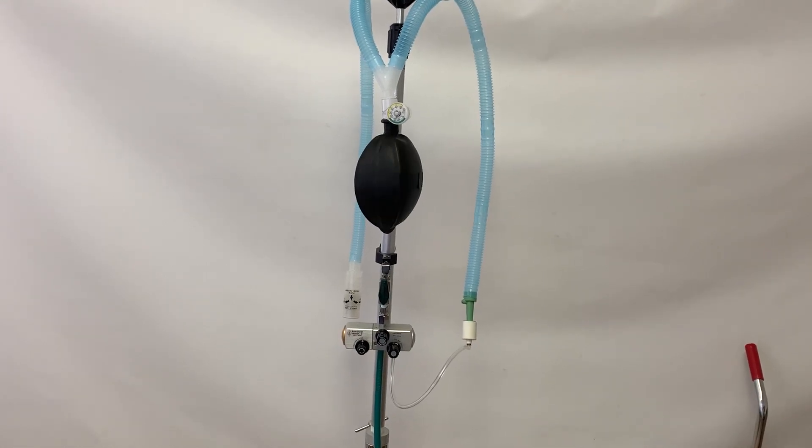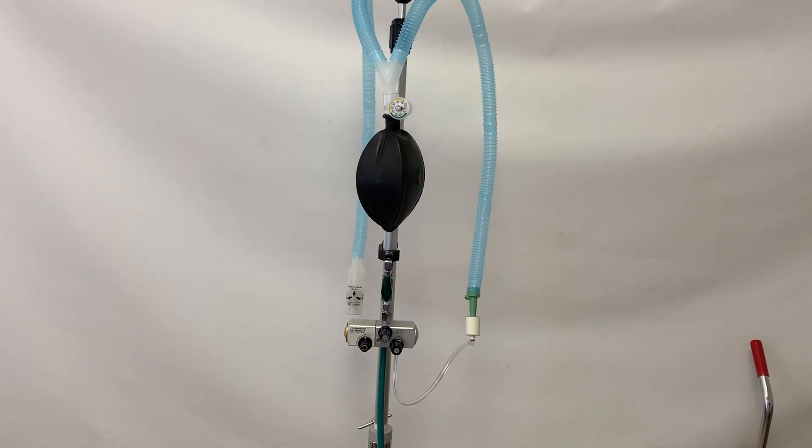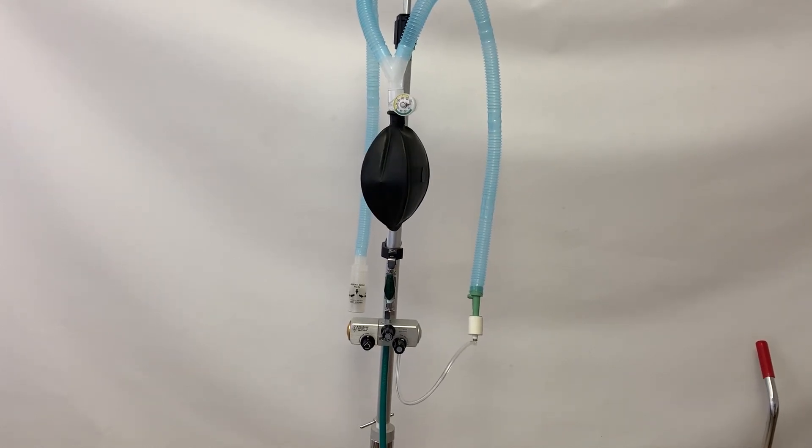We have constructed a simple patient circuit for demonstration in this video, but the JD Medical Mark II ventilator can be used with a variety of patient circuit connections.